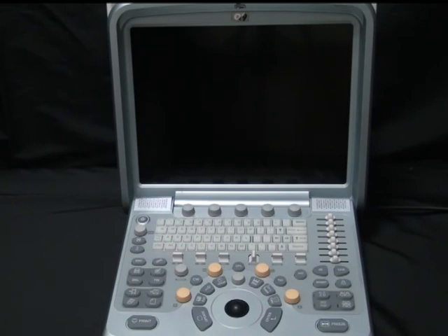Thank you for choosing Chison Q9. Now, we are going to give you an operation training.